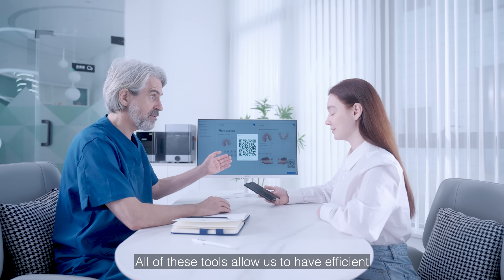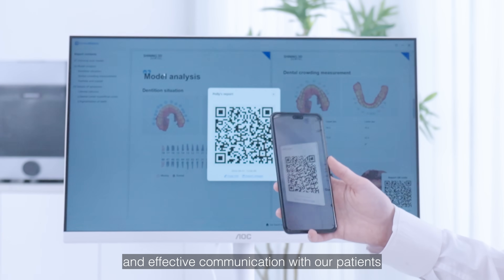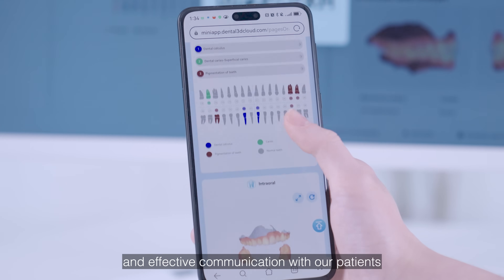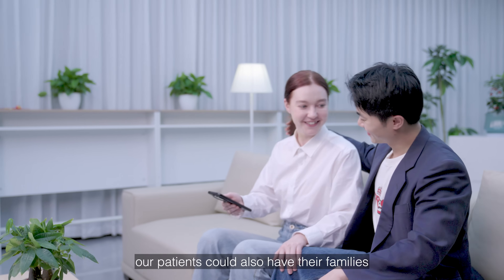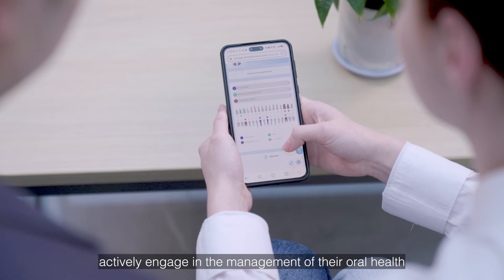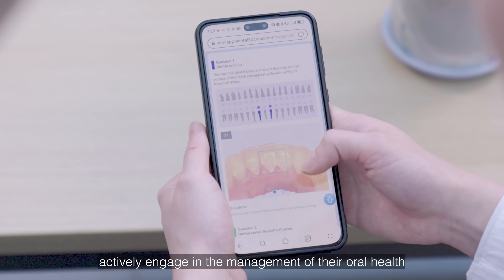All of these tools allow us to have efficient and effective communication with our patients. With all the sharing, our patients could also have their family actively engaged in the management of their oral health.